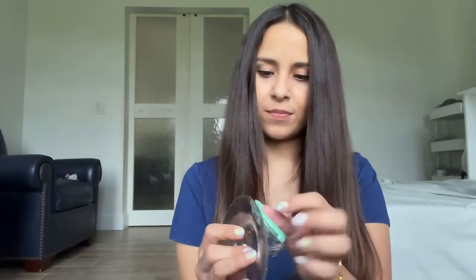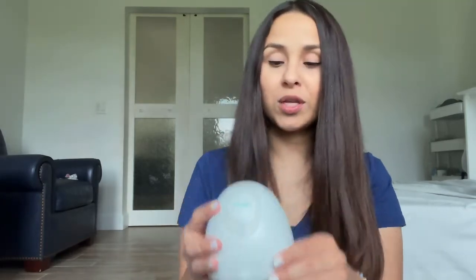This thing is very complicated to work. Let me show you. This part is separate from the pump — you just connect it here, and you see the center here. It has to be exactly the center. Or even though you have a little bit of pain and you think you are pumping, 20 minutes later when you look at it, there's no milk in it. Why? Because you didn't put it correctly.